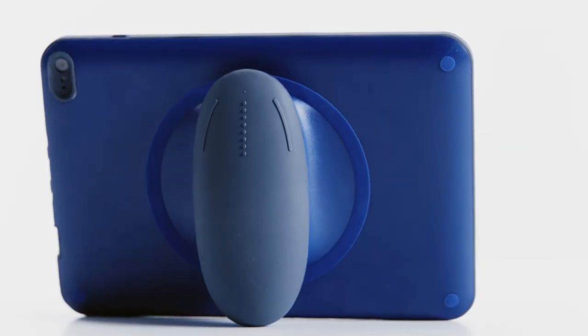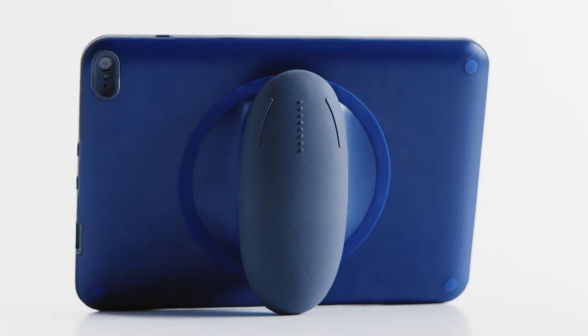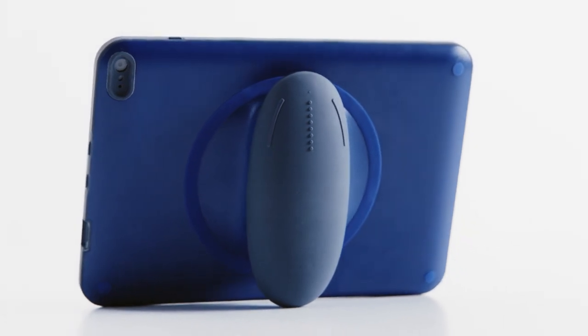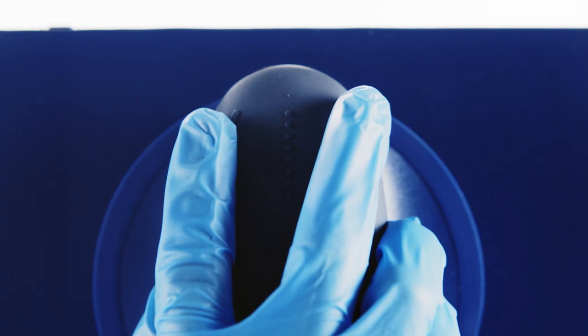The handle controls consist of two buttons and a slider. These buttons are protrusions on the handle that make it easier to find them while scanning. The buttons do not move when touched but are sensitive to light touch just like the touch screen on the front of the bridge.